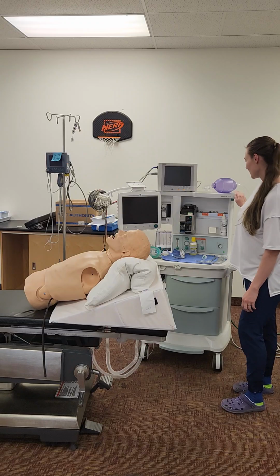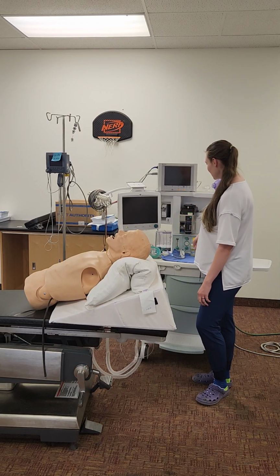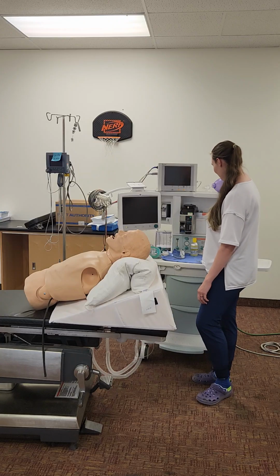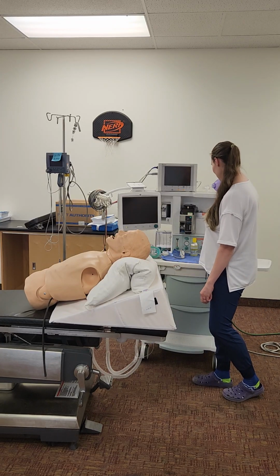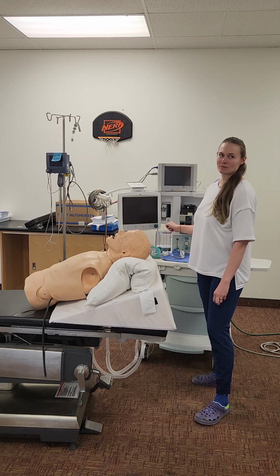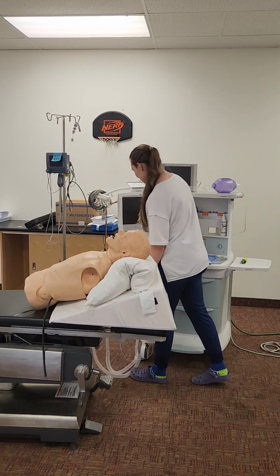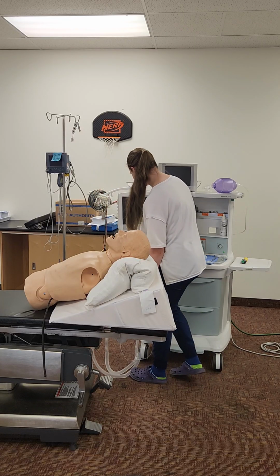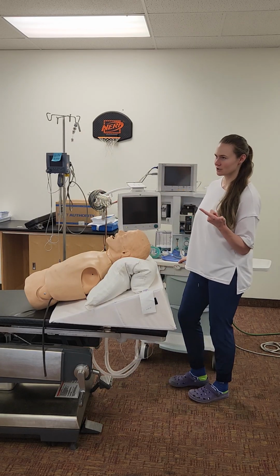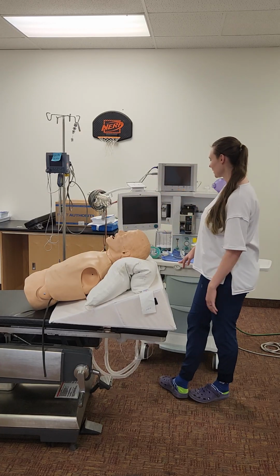And then I can check my gases, so I can fill them up if they need to be filled, screw the cap on tight, and then check my interlock system. Then I can do my low pressure system leak check, and that'll pass. Then I can turn on my machine, check my flow meters, and check my Link 25, and make sure those are all passing. I'll check my scavenging system, my CO2 absorbent, and my O2 analyzer, and make sure that's calibrated to room air and then 100% oxygen. Make sure all my monitors and alarms are calibrated correctly.